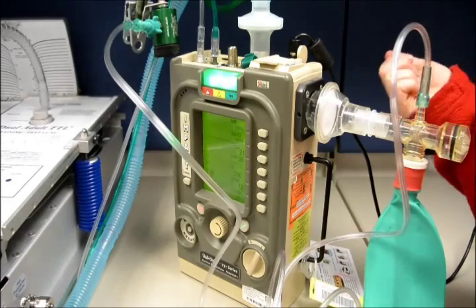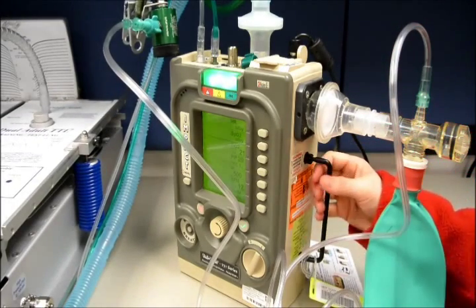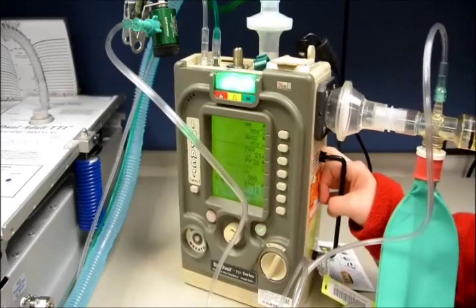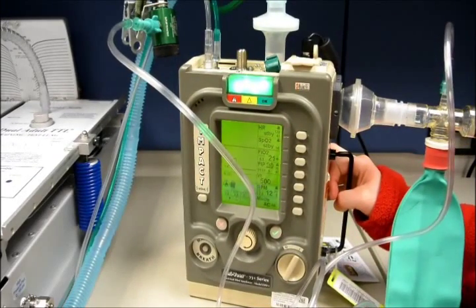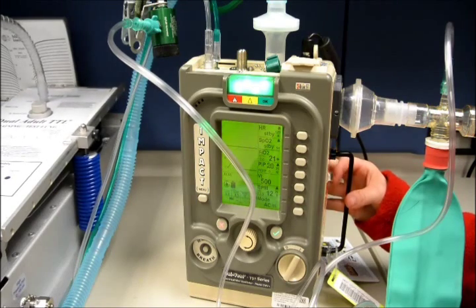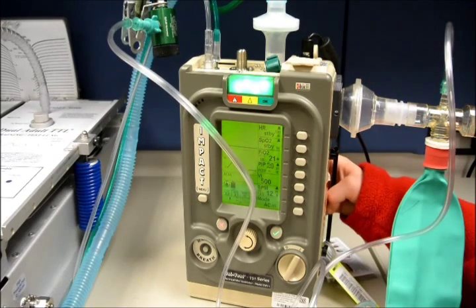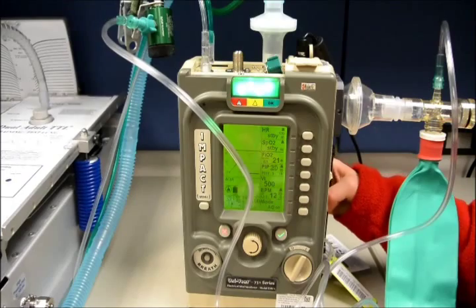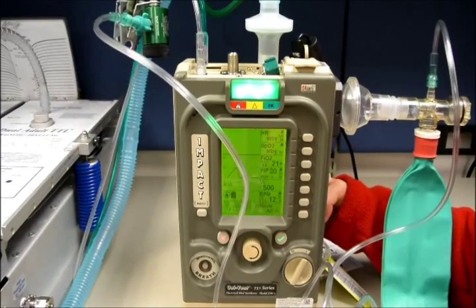We will need to turn the flow meter on to the liters per minute based on what our minute volume is on the ventilator that our patient is doing.